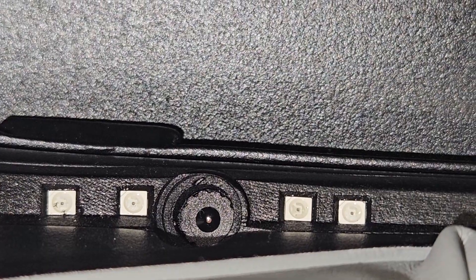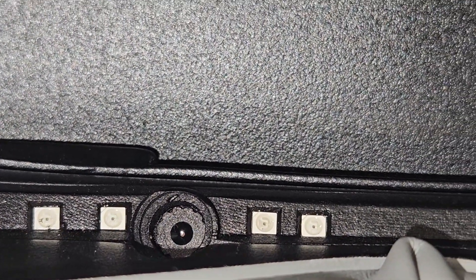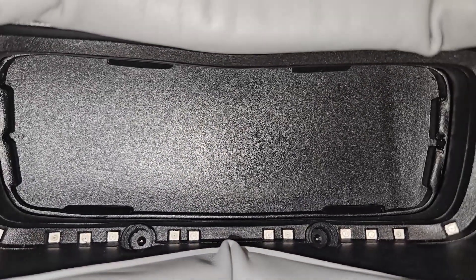To ensure clear imaging, even in total darkness, the goggles are equipped with seven infrared LEDs per eye, arranged in a strategic L-array.